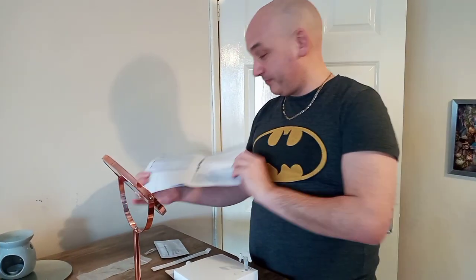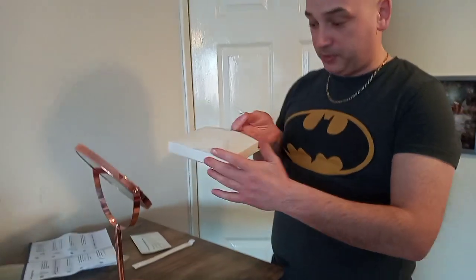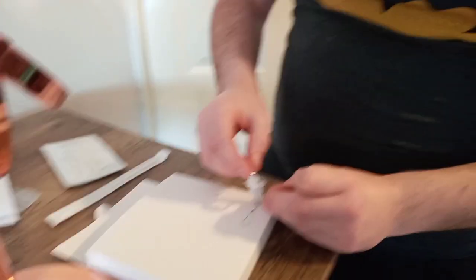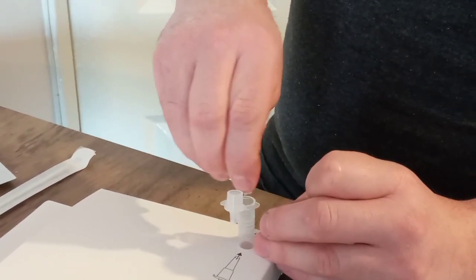Welcome to Geeker Shaves, but a little bit different. The kids are going back to school tomorrow and they have been given rapid test kits, so we're going to try one. My partner just tried one, so seeing how to do it. You get a little pipette stand thing, put it all in, open up your liquid, twist it — there we go, fill it up.